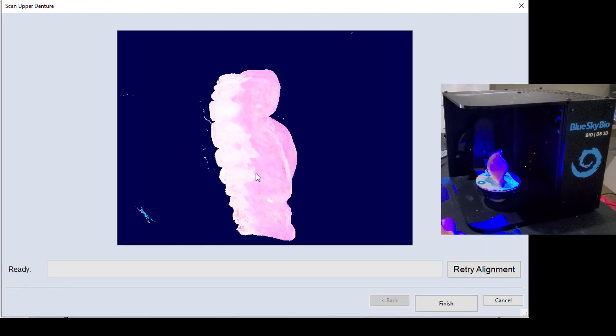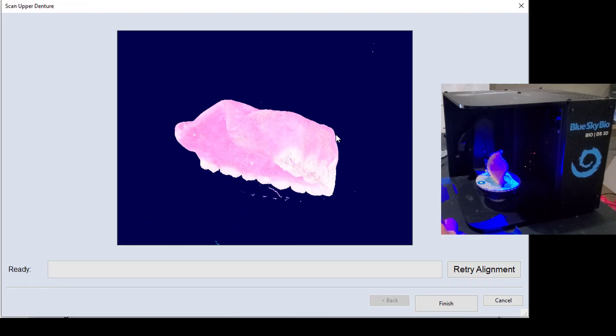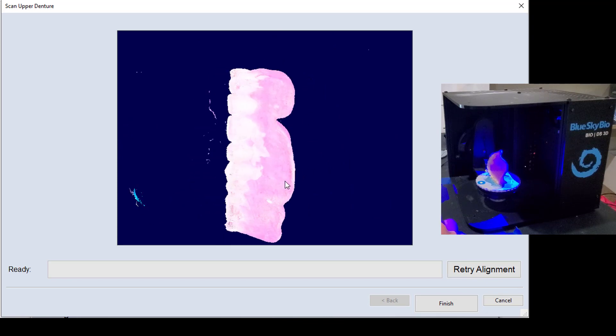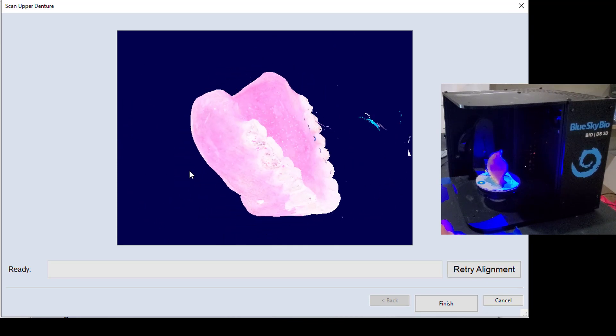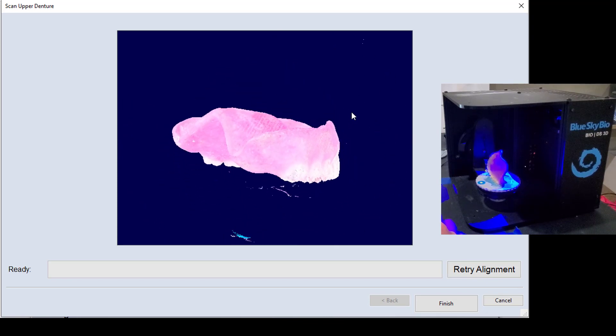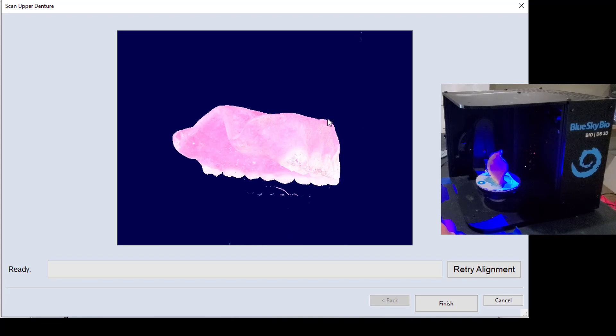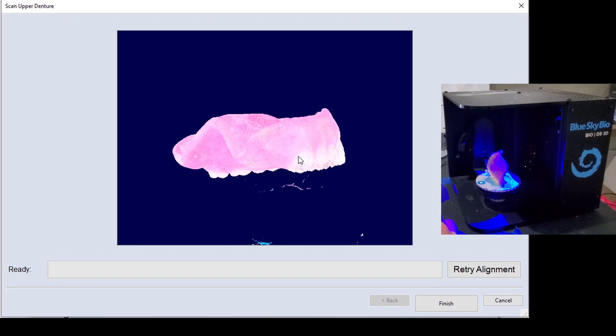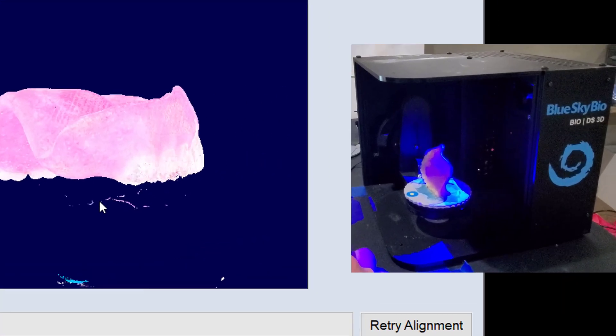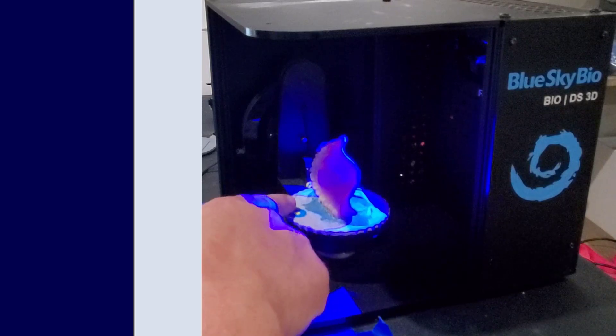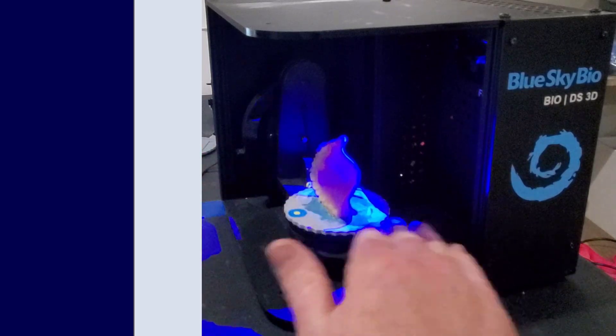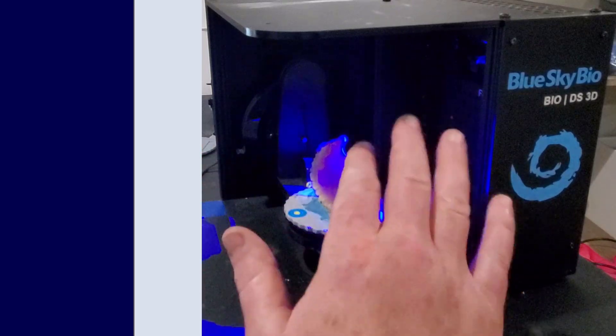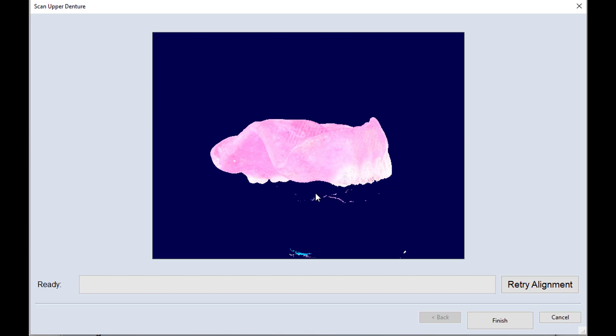And so here you see that stitch is now complete and we have what looks just like a pure denture with no additional parts or pieces on it. And you might be wondering how it avoids getting that build plate. The software does recognize this dot and the plane that this dot is on in the scanner. And so the software is able to cut that out. And so it's just going to cut out the little portion where it attaches to this and that gets picked up on the opposing scan.